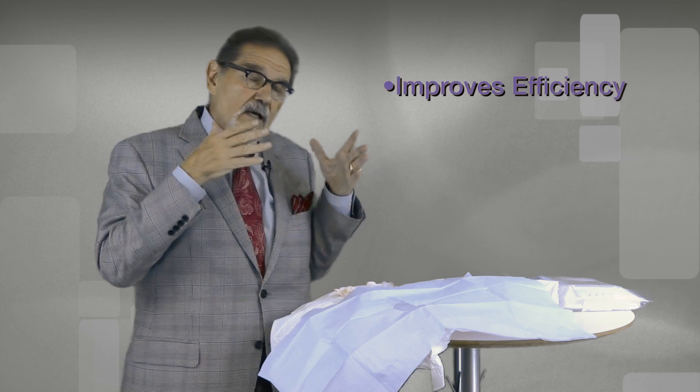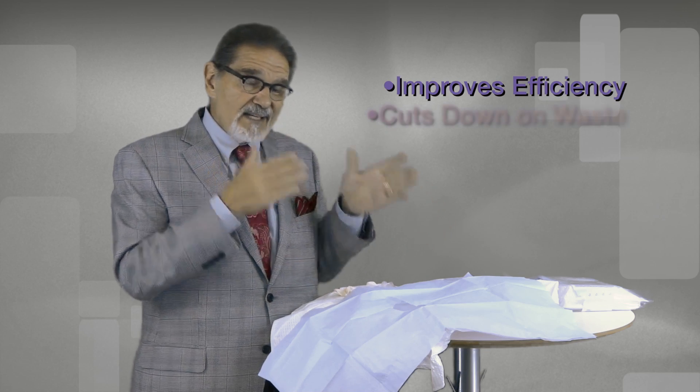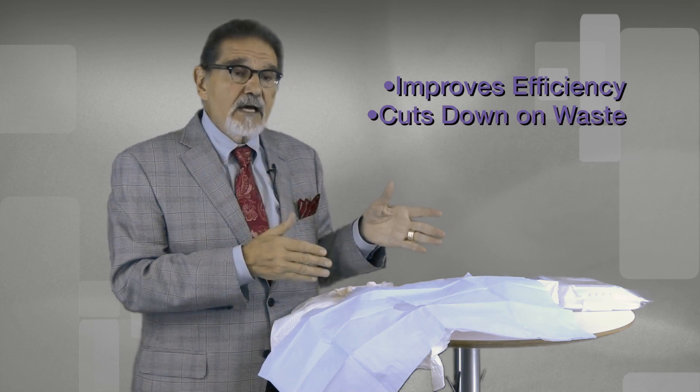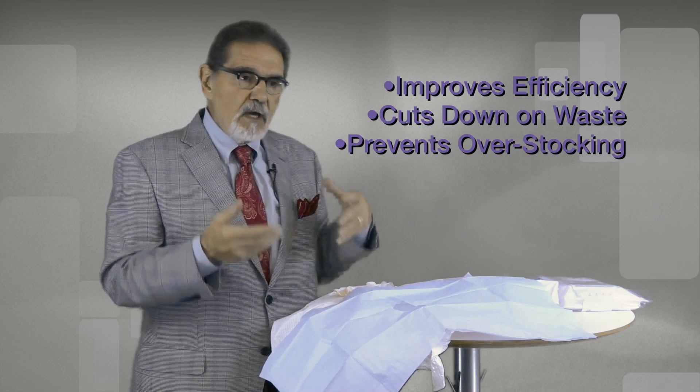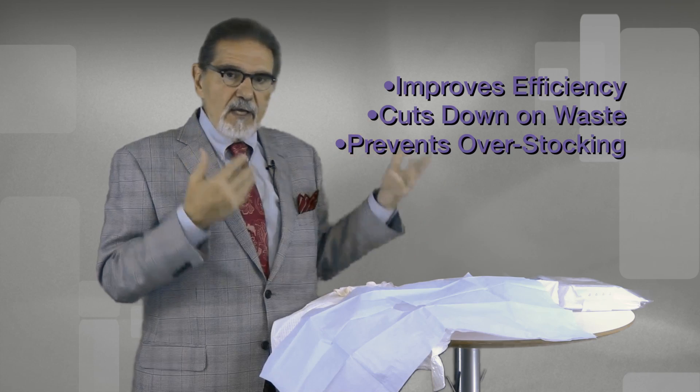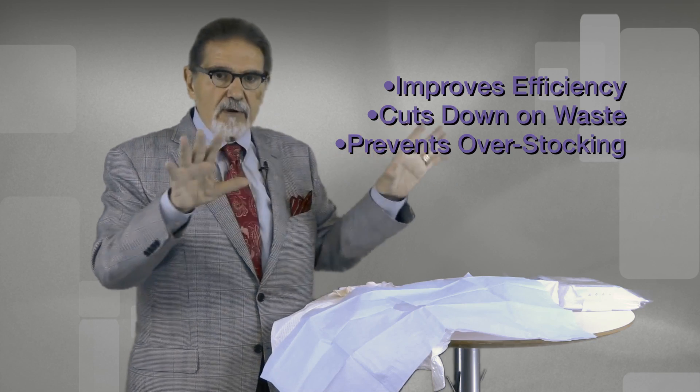So I think that the usage of this would markedly improve the efficiency of your practice. It cuts down on waste and it cuts down on overstocking your shelves with gloves and syringes and all of those things that clutter up your office. So think seriously about using these because it makes the pellet practice that much more efficient and economical.